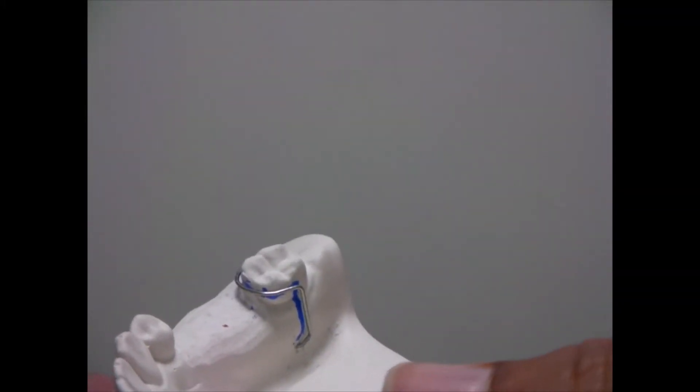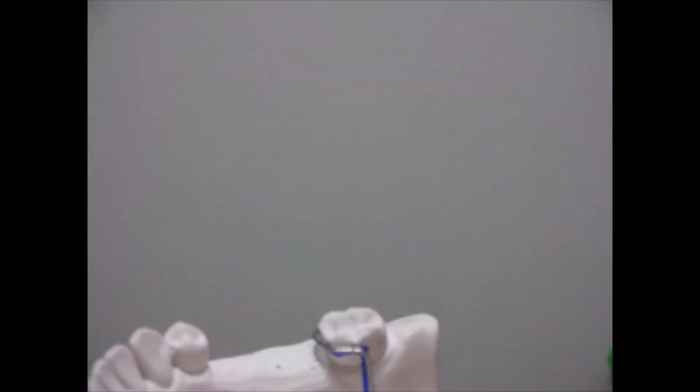But here we will be creating a type of clasp which is known as a circumferential clasp or a C clasp because of its shape.